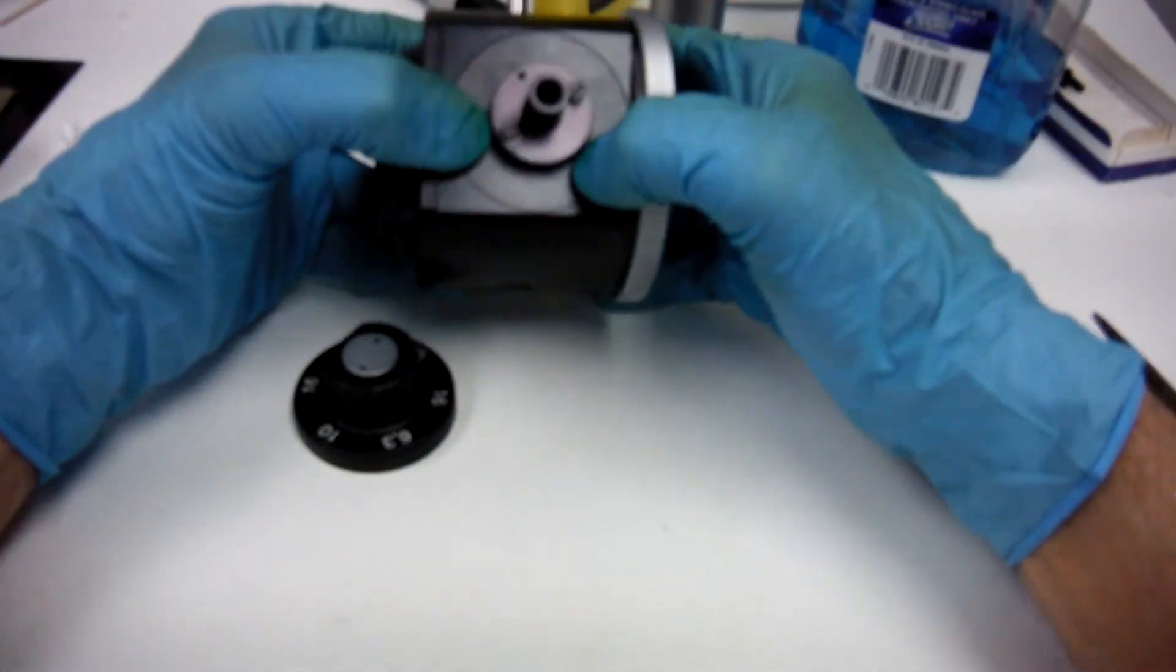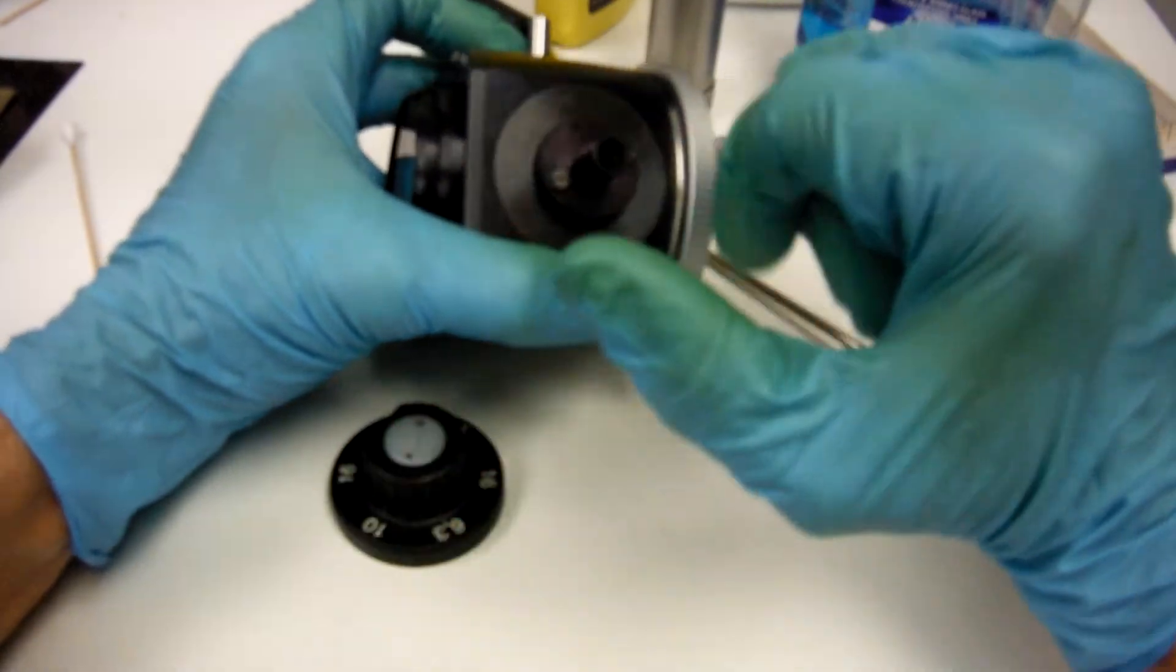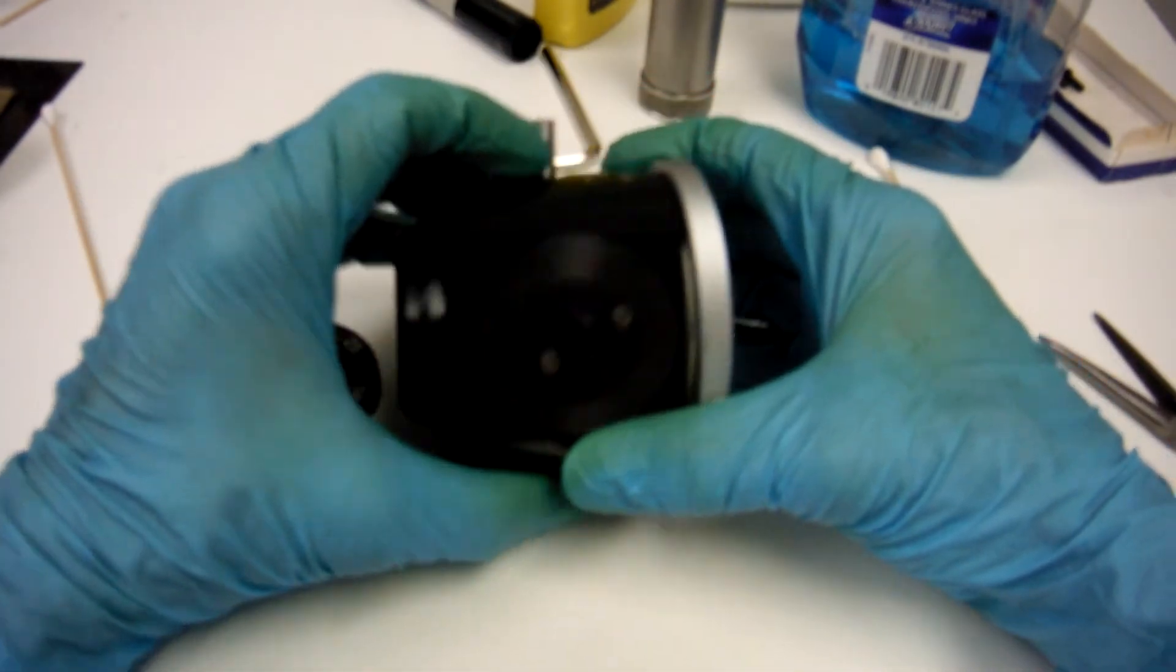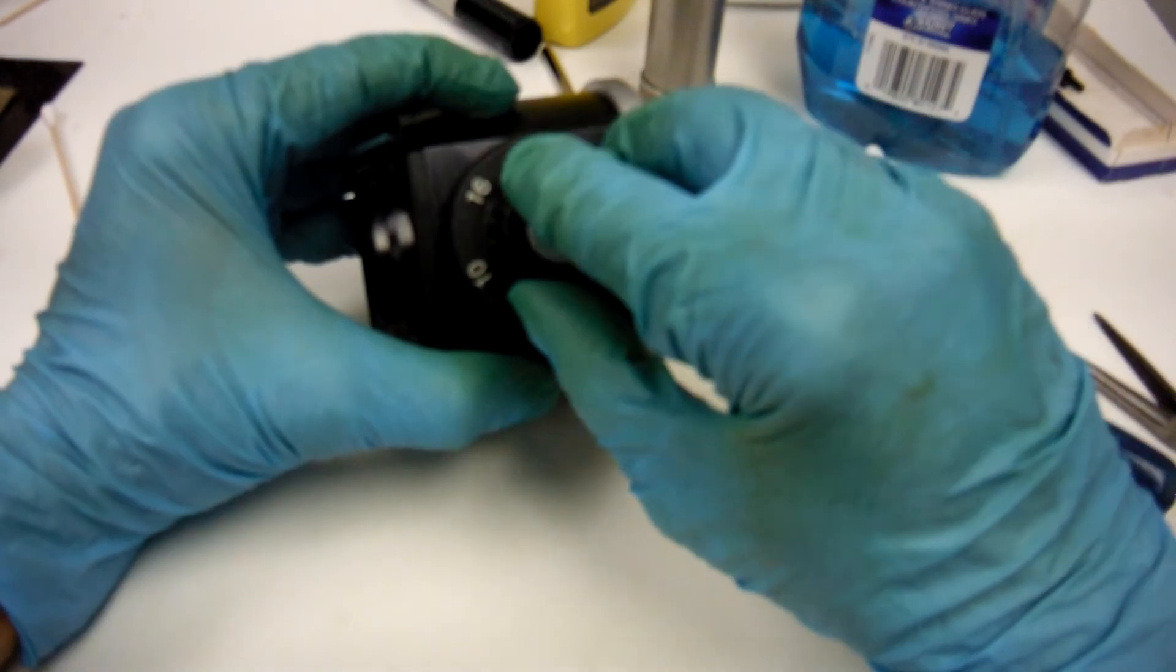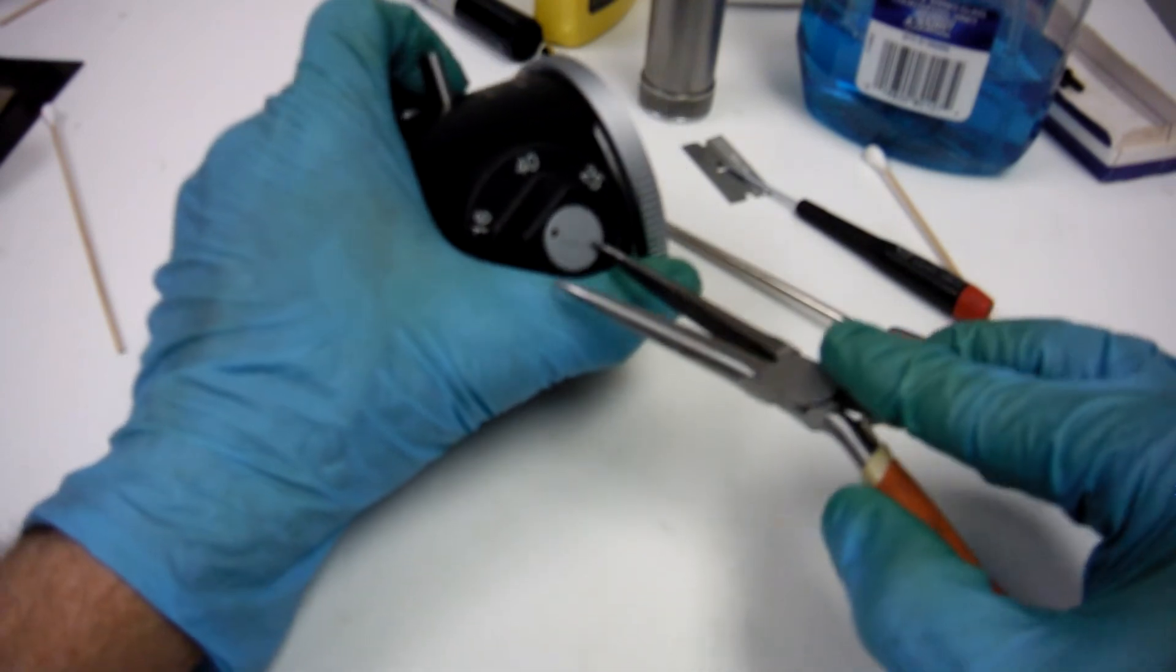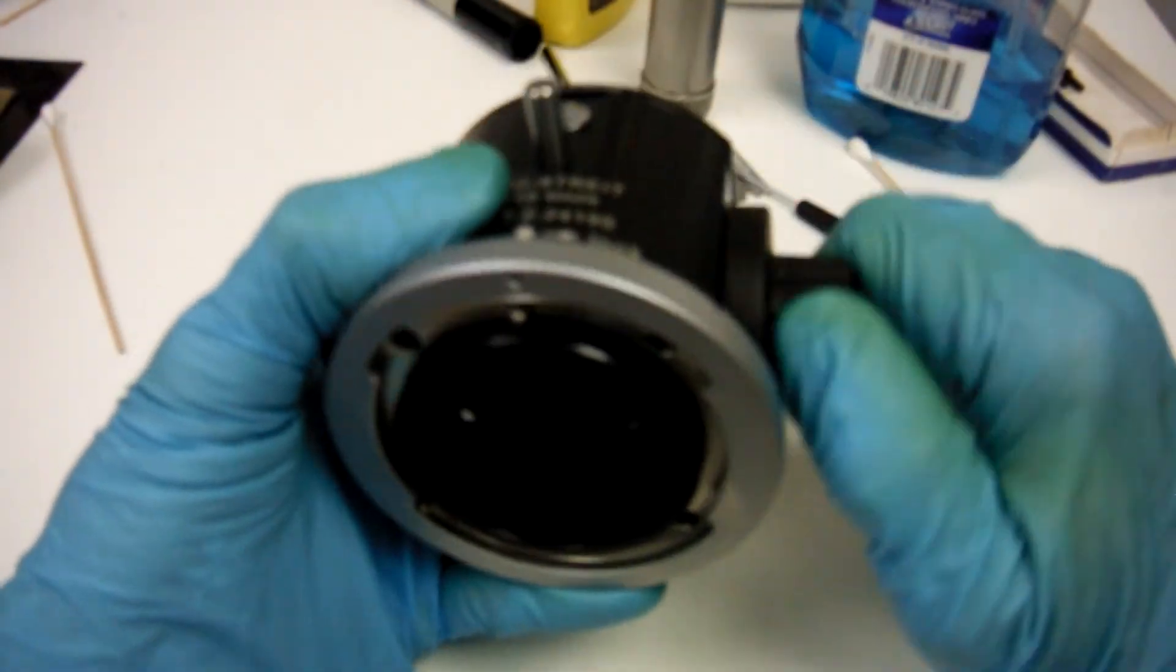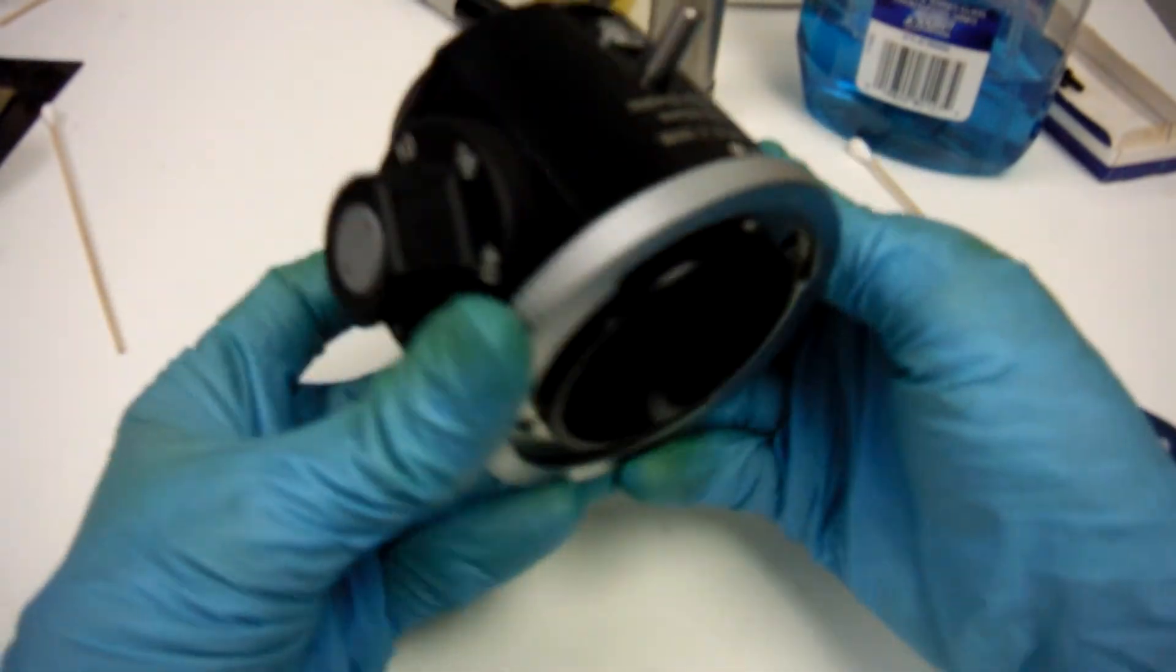Let's just screw back in. Turn around. It shouldn't have any play. There's the two screw heads. Knob. Get it back to 40. Get the 40 on top. Hold, line up. That's what will happen if you're not careful. They'll slip and mark it a little bit. That's it. It should be nice and smooth. It should be clicking. Just like factory. You can do this.